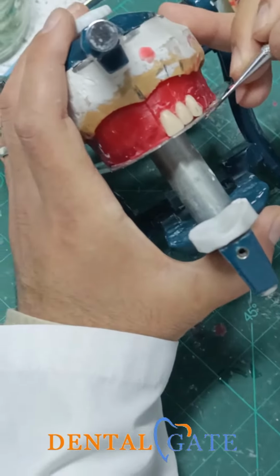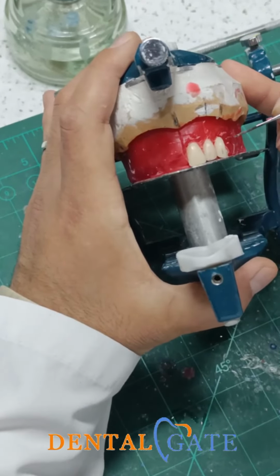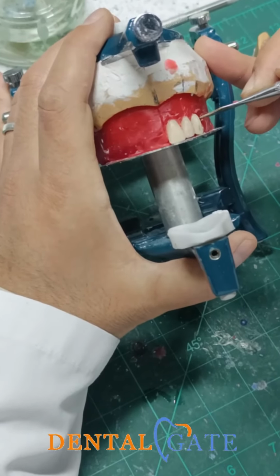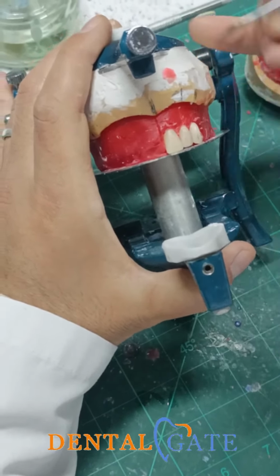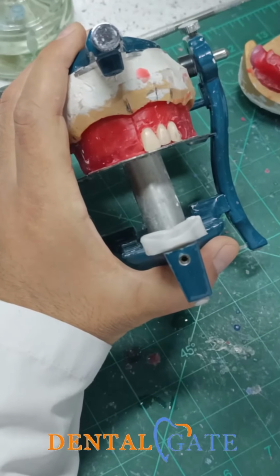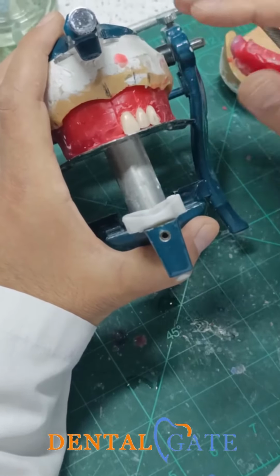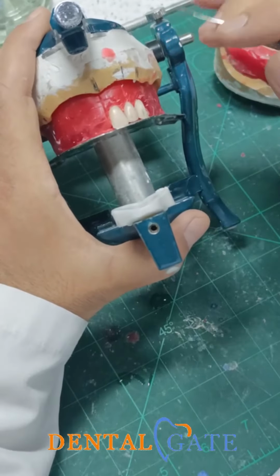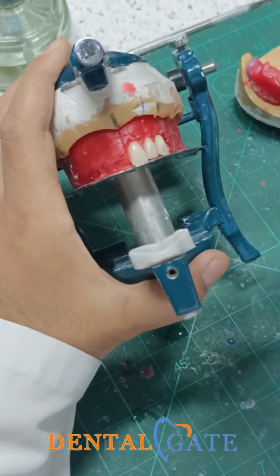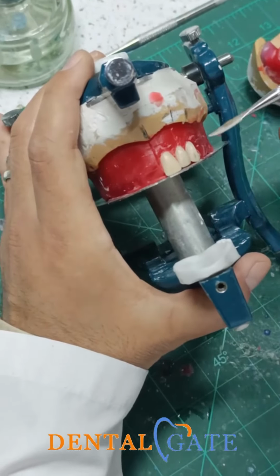So the canine should touch the table because this is the occlusal plane. This area should be prominent, as well as this area, regarding the anatomical landmarks of the canine. When I put it in the correct position, it will produce these features. So I pay attention to the canine as I mentioned in the previous lab. This is because it is the cornerstone of the arch, and it will alter the curve of the teeth. So the curve of the anterior teeth should be preserved.